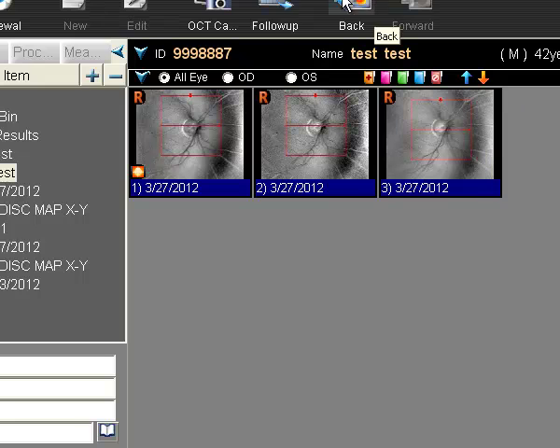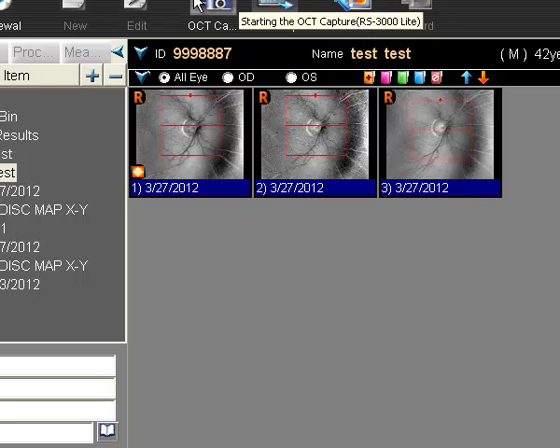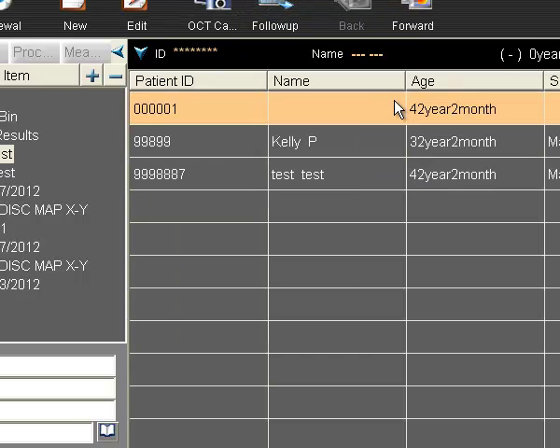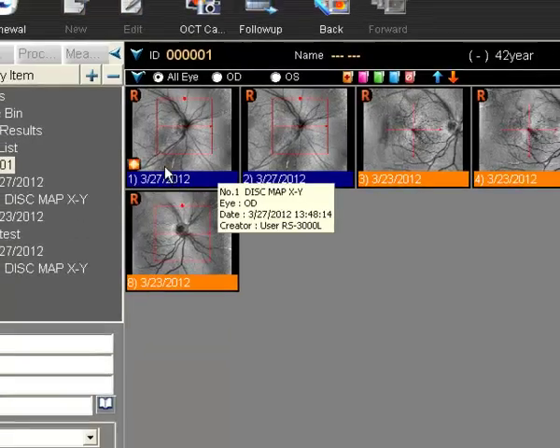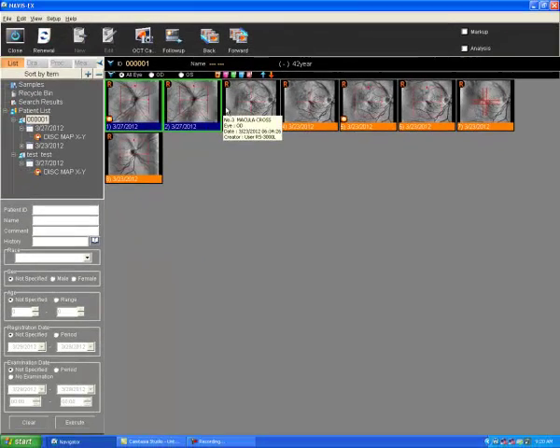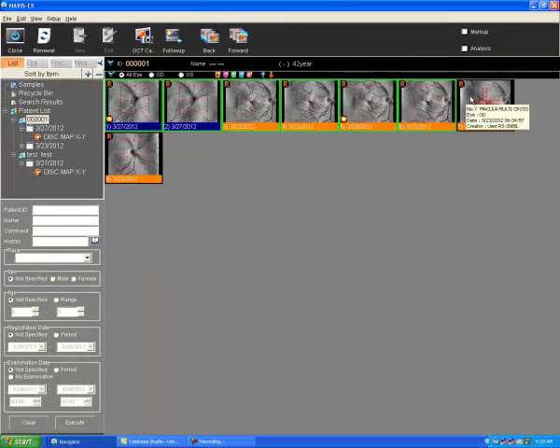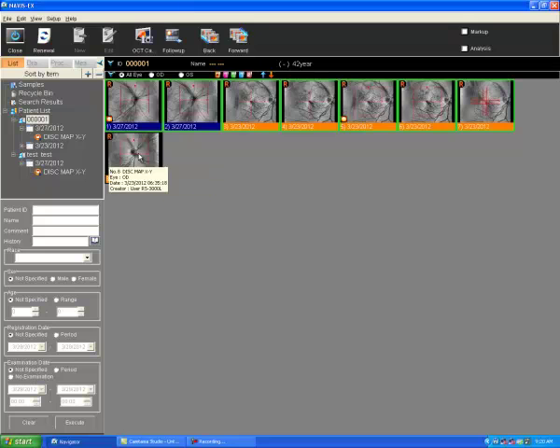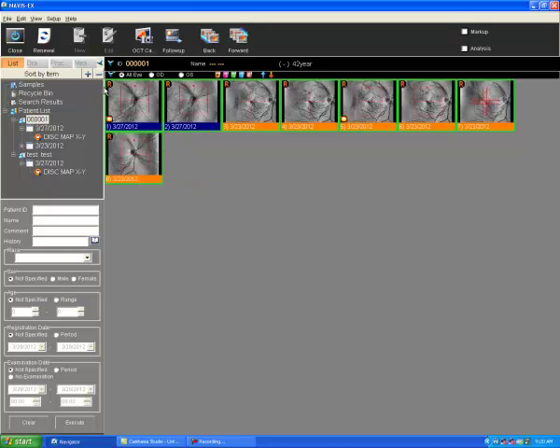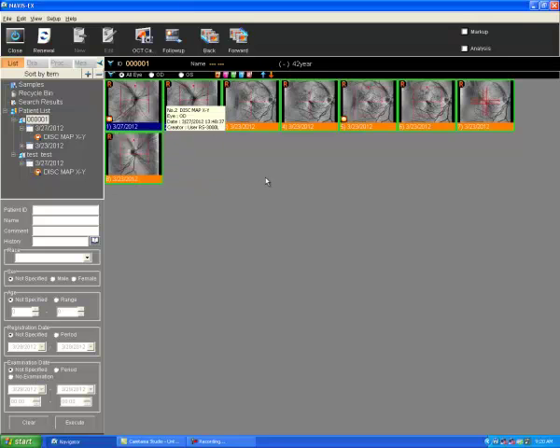So what we can do is find the patient. If we go back, these are scanned incorrectly, so we can select all of these scans by simply clicking on them. You'll notice the scans are selected and have the green area around them.